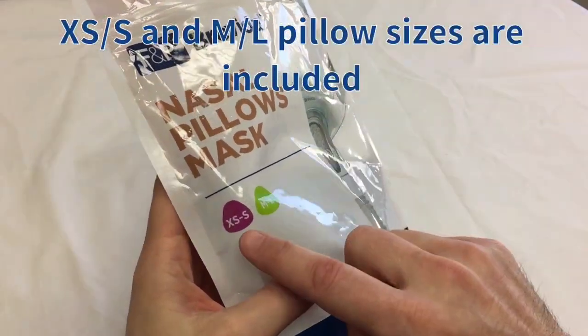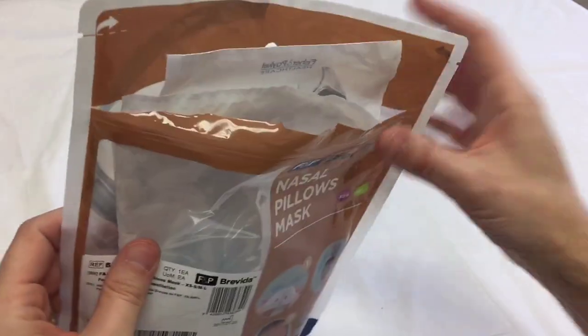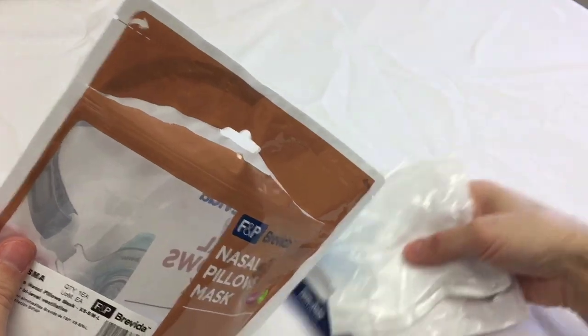This will come with two different size pillows, the extra small/small and the medium/large. So we'll open up the package, and this is exactly what you'll get.